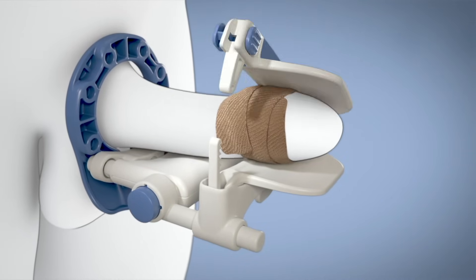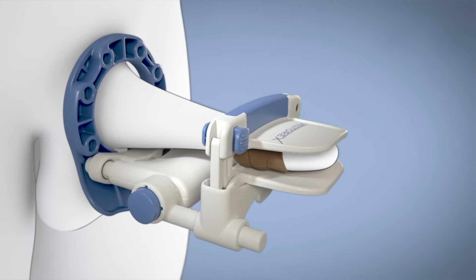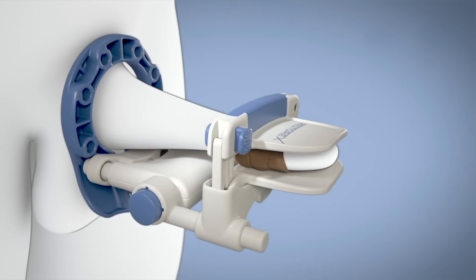Continue to close until it is tight enough to be secure, but at the same time can be worn comfortably for 30 minutes.